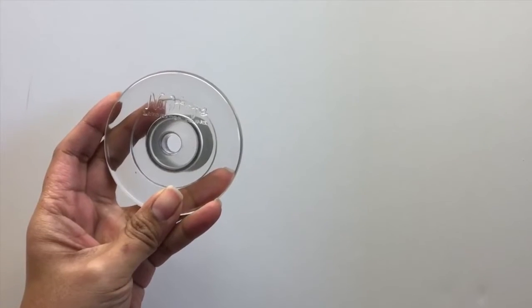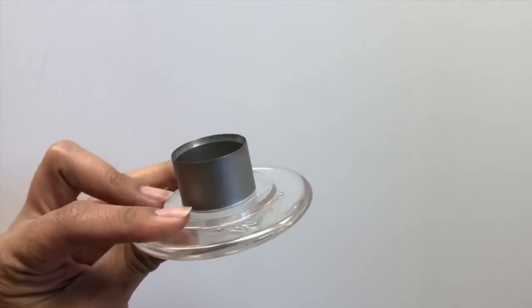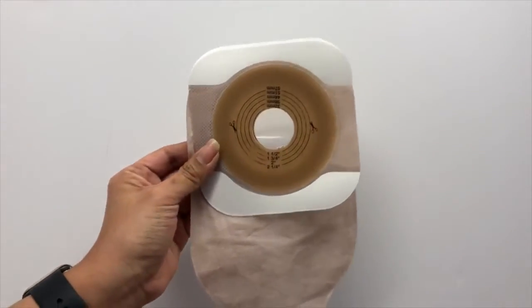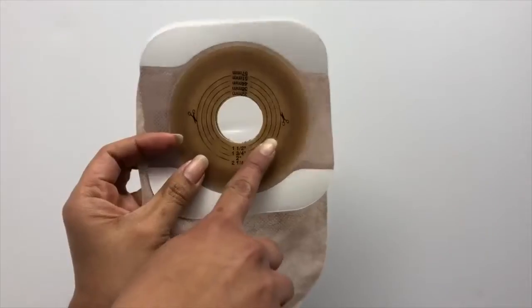One of our accessories that we offer is the hole cutter tool. The hole cutter tool is for two-piece systems only and it creates a clean, consistent, and accurate opening in various barriers and flanges.